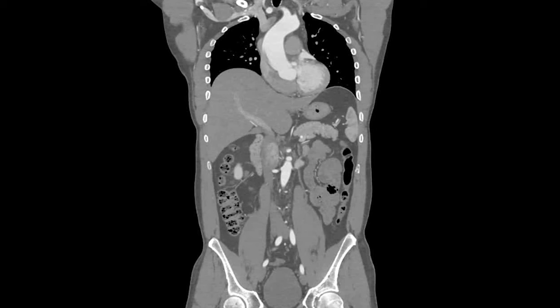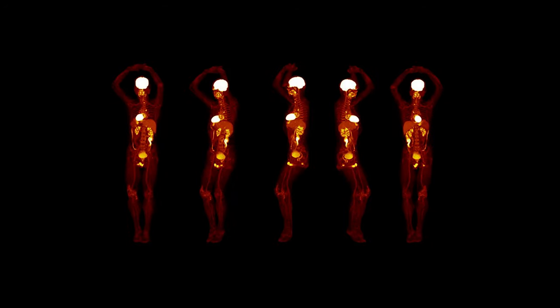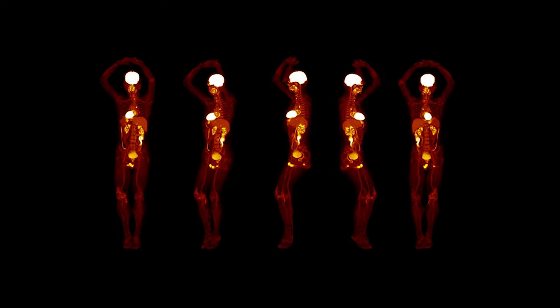The purpose is to get some sort of 3D map of the patient. In a CT scan that's a 3D map of density. In nuclear medicine, where you inject a patient with a radioactive material to treat cancer, you want a 3D map of radioactivity everywhere in space. Physical systems like SPECT, PET, and CT scanners don't directly give you 3D data — you collect raw data using scanner technology. PyTomography takes that raw data and makes 3D maps of the patient, and is right now really focused on SPECT imaging and reconstruction.